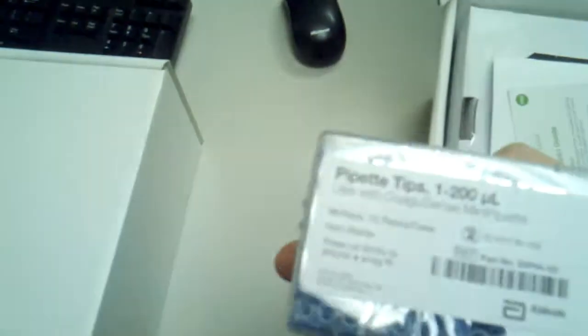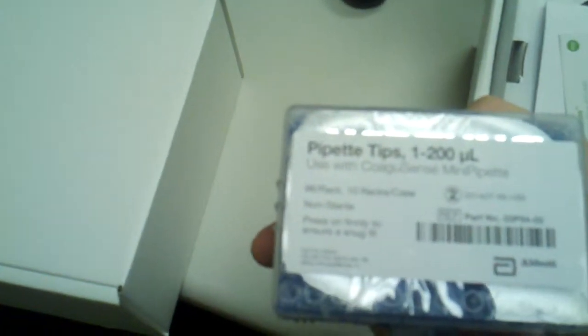Here is the power supply. This is the lancets. These are very high-end lancets. I like them. You can see there's about 10 of them in here. It does have an expiration date, and it's about three years from now, so plenty of time. Here's the pipettes, batteries, and this is the tips. And there's 96 of them in there.